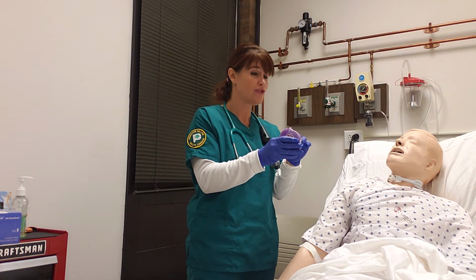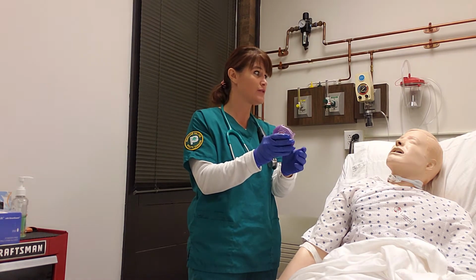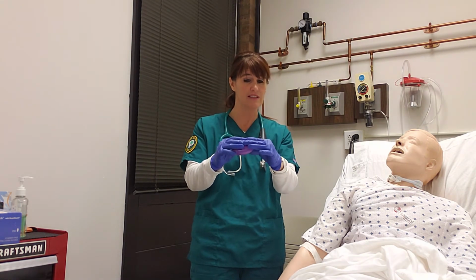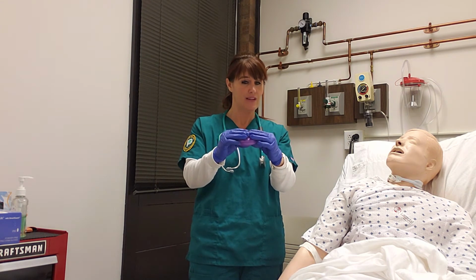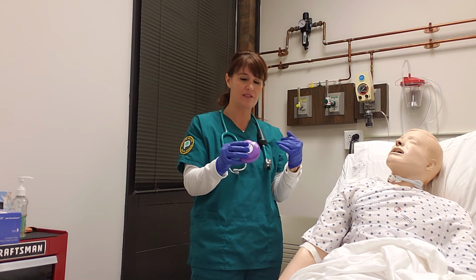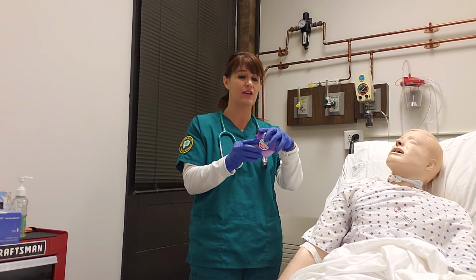So remember, there are 2 clicks. The first one: open, counter goes down, clicks, medicine's ready. Second click, the medicine's ready to be inhaled. Okay? So exhale, put this to your lips, and draw in. Suck the medicine out of there. When you do that, hold it for 10 seconds or longer. The more time it's in there, the more it can go, so hold it as long as you can and then blow out. And then you would just close this up.